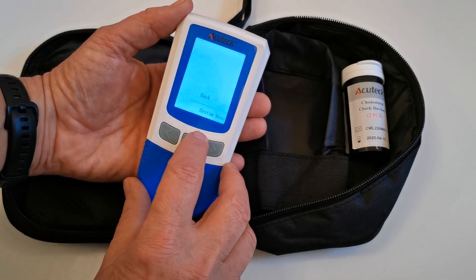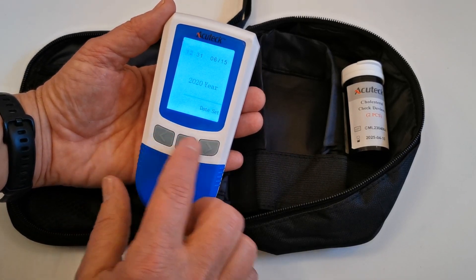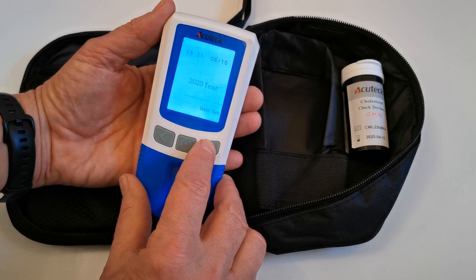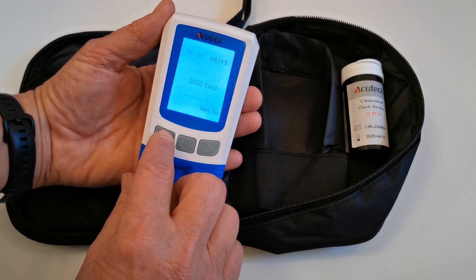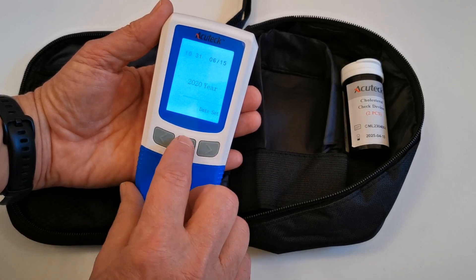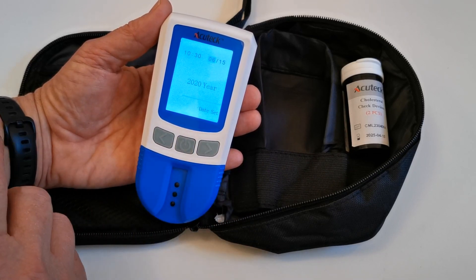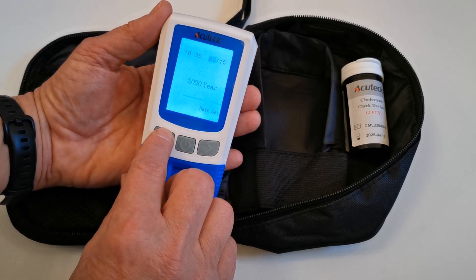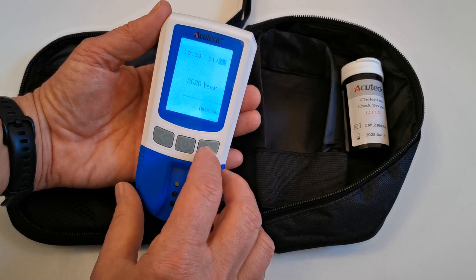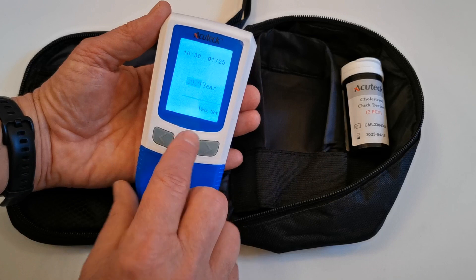I'm just going to press the power button again to select that option. It's got a 24-hour clock on. You can use the right or left buttons to change the time. I'm going to set this for 10:30 a.m., then take the minute down by one. We've got month first and then day, so the month is January and the day is the 25th.